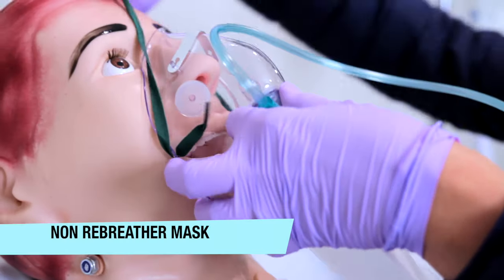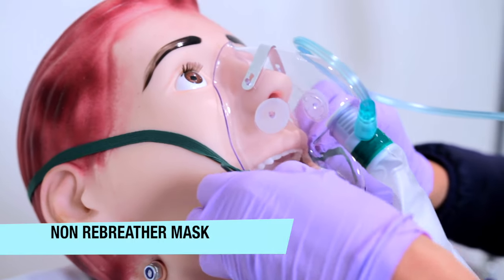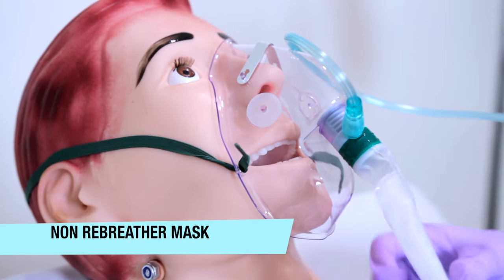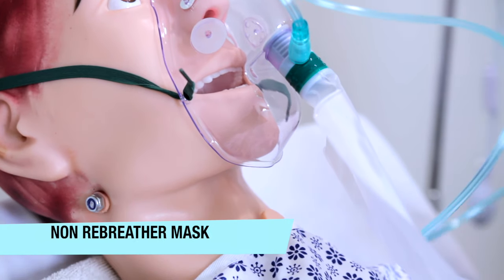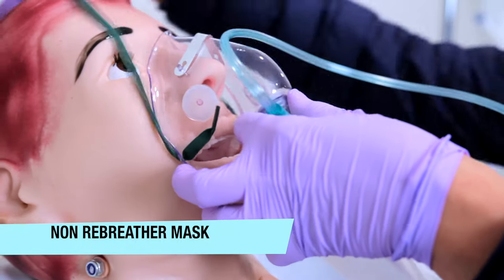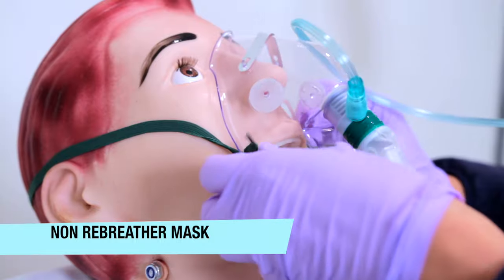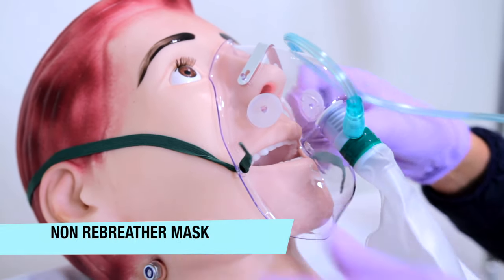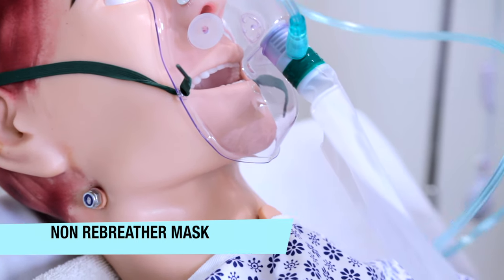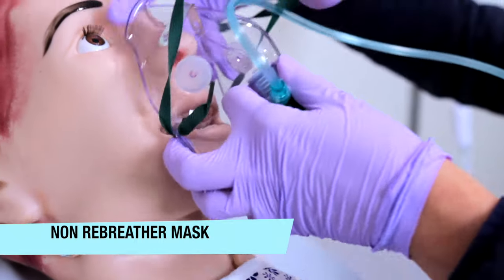This is a non-rebreather mask. With a non-rebreather mask, always make sure the mask fits securely and that the one-way valves are secure and functioning. It's important to understand that this mask excludes room air, and if the valve malfunctions it can suffocate an unconscious patient because it builds up carbon dioxide. This mask has a one-way inspiratory valve that opens during inhalation and moves oxygen from a reservoir bag into the mask.